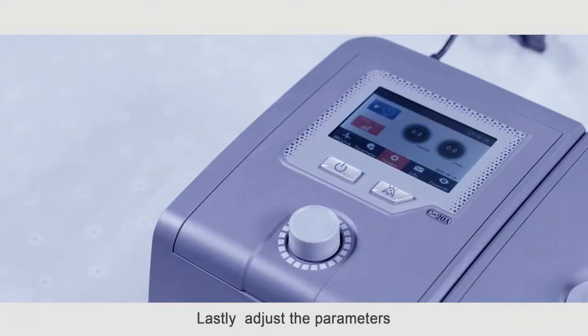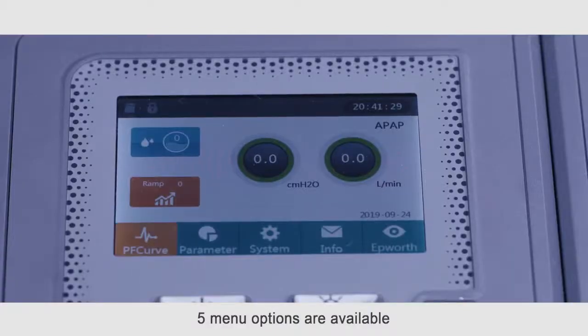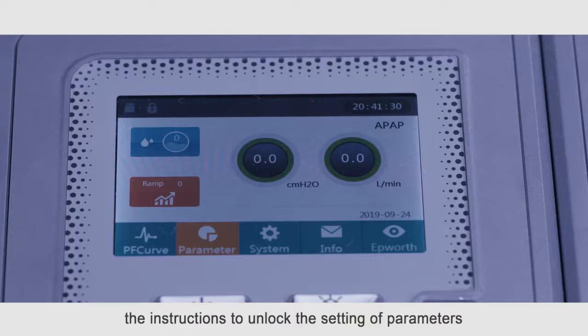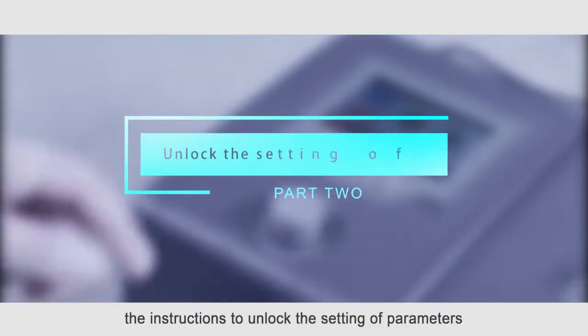Lastly, adjust the parameters according to treatment needs. 5 menu options are available on the lower status bar of the main interface, of which parameter is the common function. The instructions to unlock the setting of parameters.